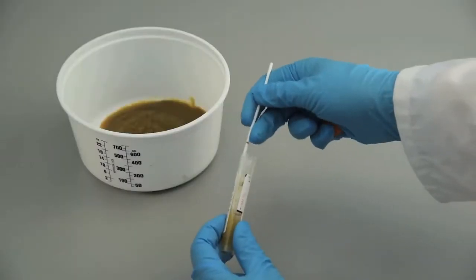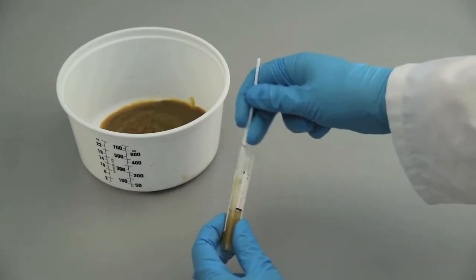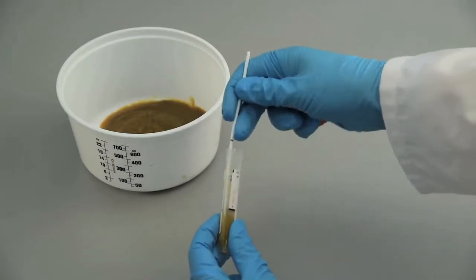Holding the swab shaft between thumb and finger, mash and mix the stool specimen against the side of the tube to evenly disperse and suspend the specimen in the medium.